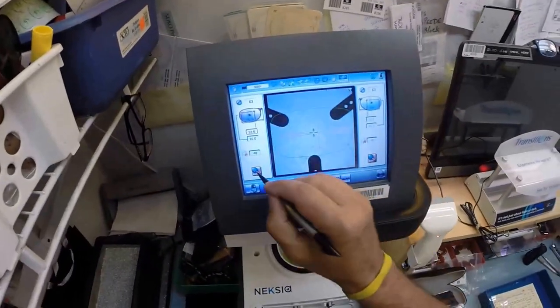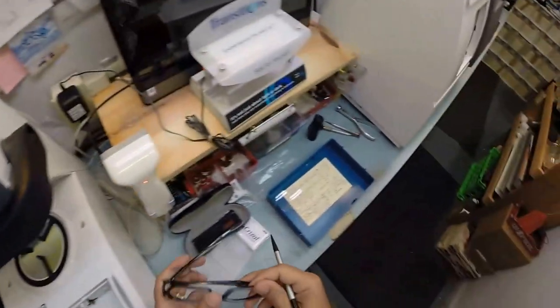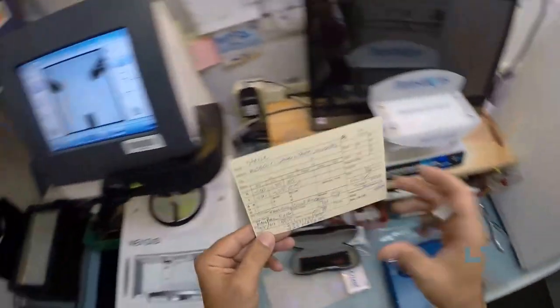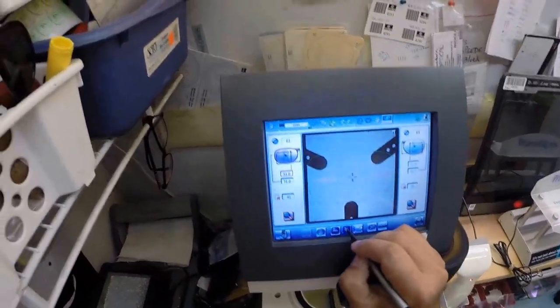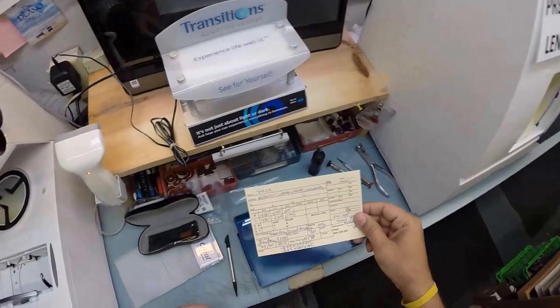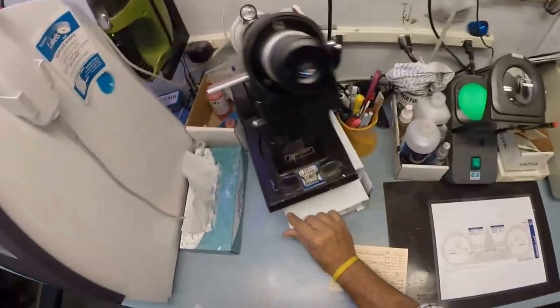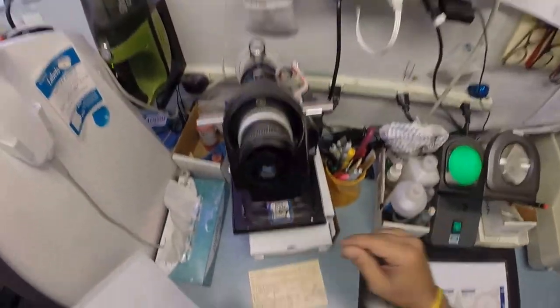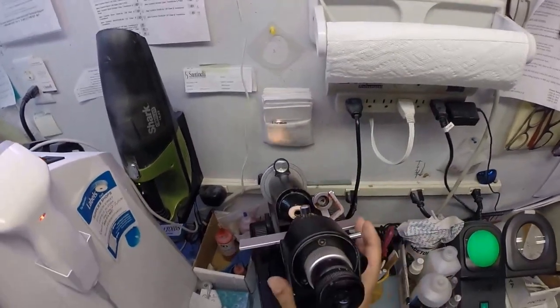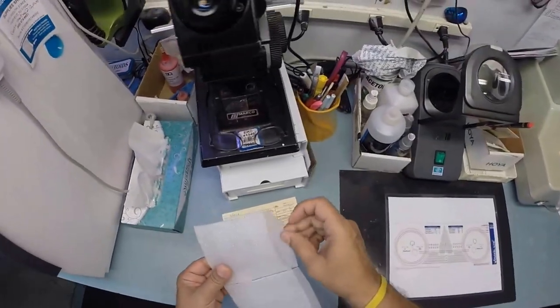This is the shape, that green outline. That is the shape of the lens we will be cutting. Your pupillary distance for your right eye is 35. We're going to put that there and put an optical center height of 18. Now I'm going to take your lenses, come down here to my Lens-O-Meter, and we're going to put the axis wheel on 105. You're going to say wait, that's not my prescription, and we'll get to that in a minute.